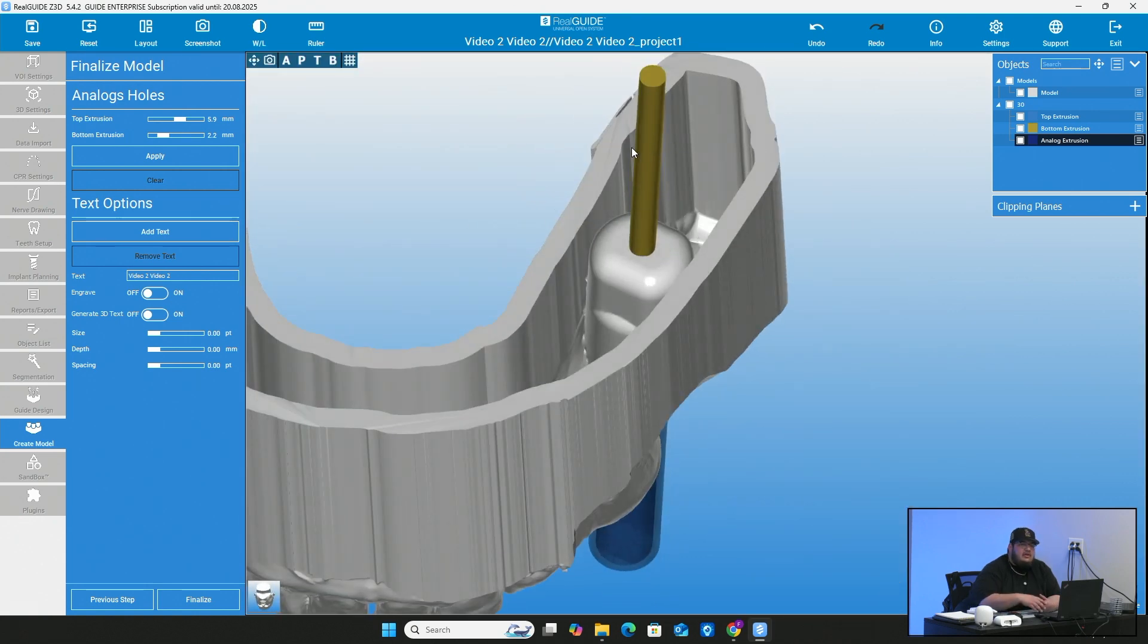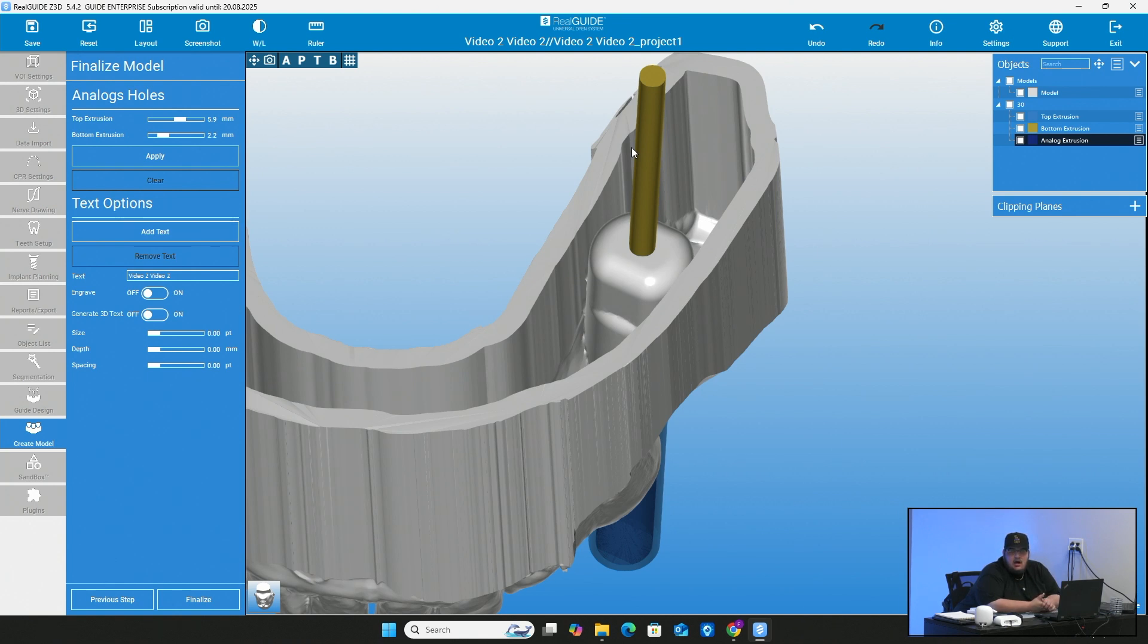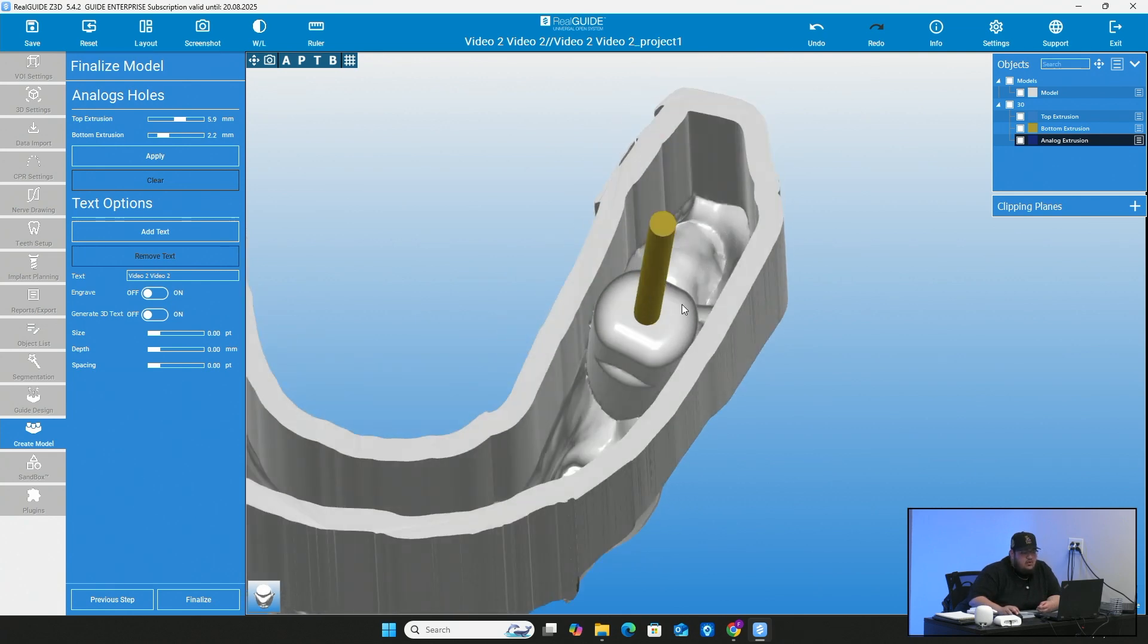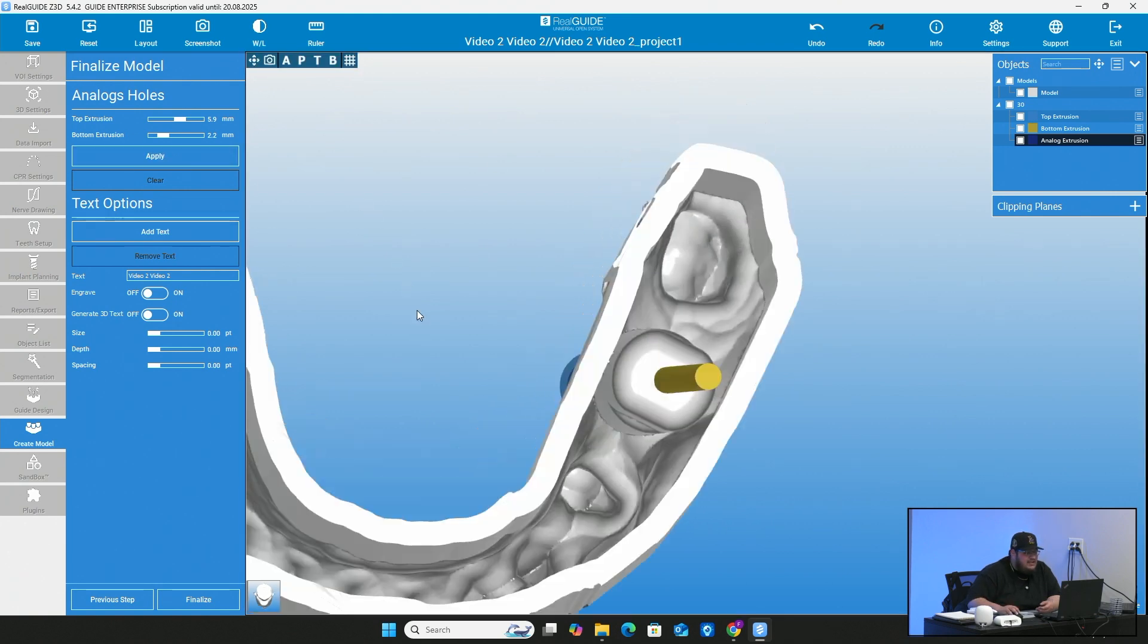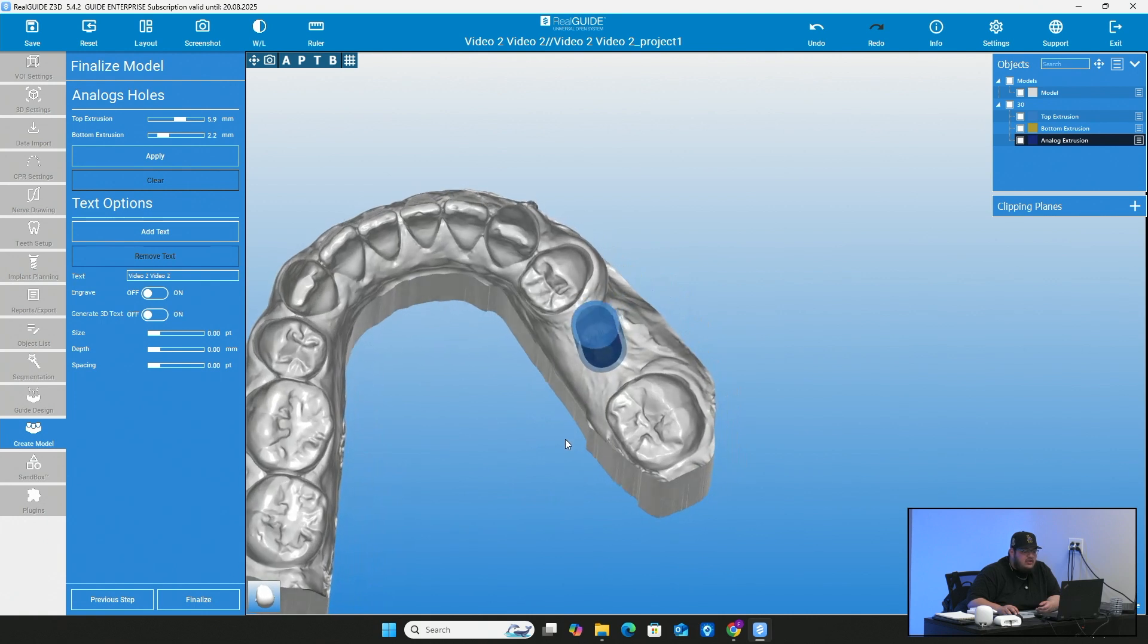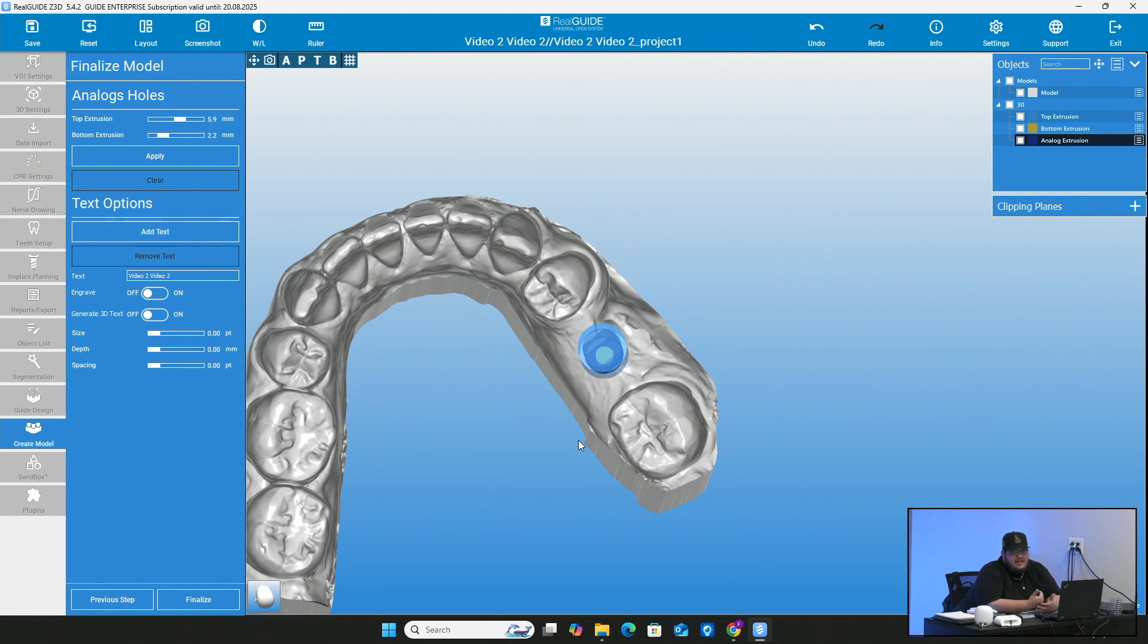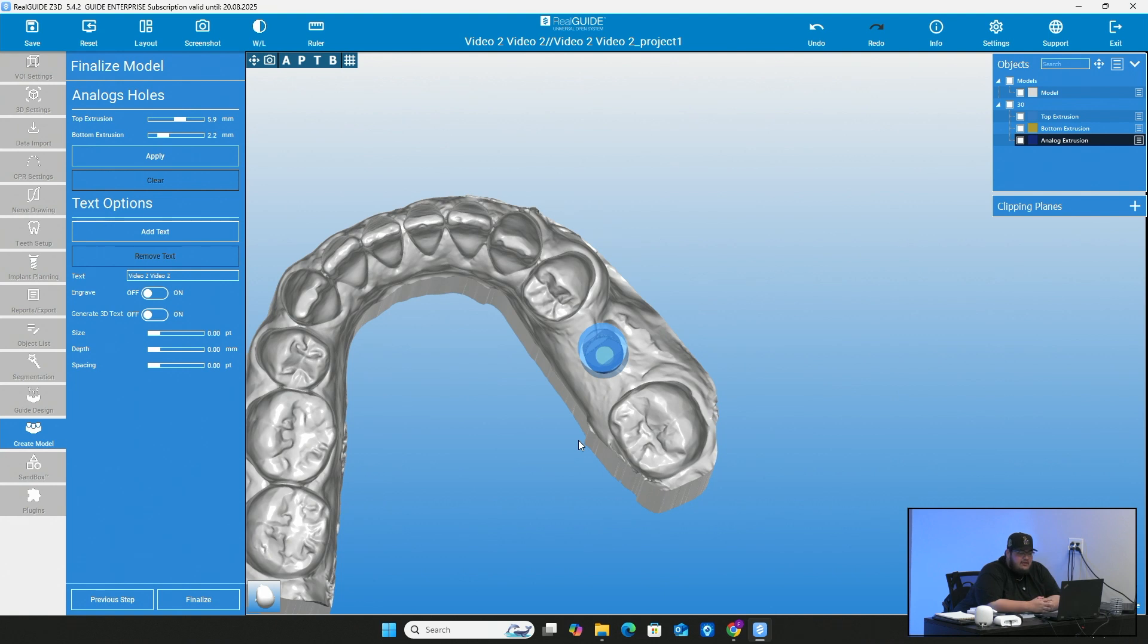And then same thing with this bottom. So the reason why this is here is some of these analogs come with screws, some don't. So there will be a hole there at the bottom no matter what, even if it doesn't come with a screw, which is totally fine. But I wouldn't make it too wide just because you don't want the analog to fall straight through. So these settings, I would pretty much just keep what the software gives you. They do it perfect. It's the perfect size for any screws if they have to go through. And it's also not too big when it comes to putting the analog in.